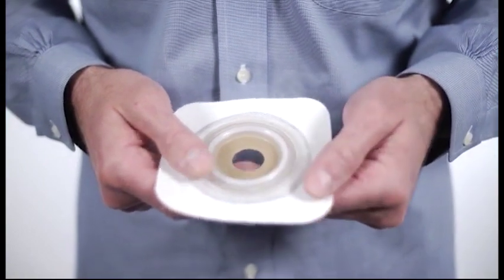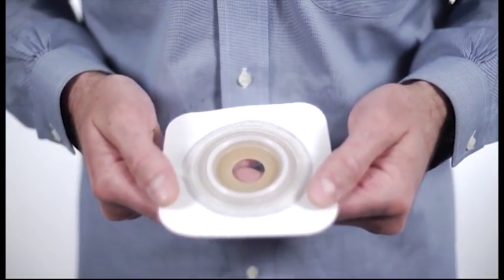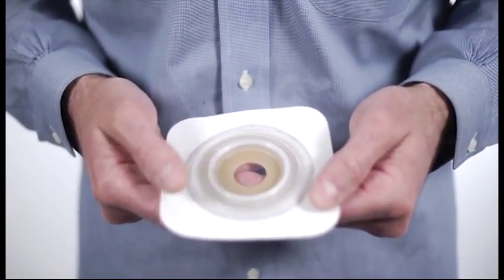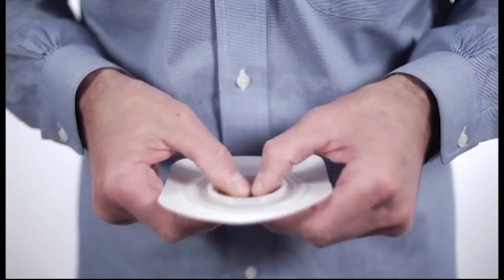When using a Convatec moldable technology wafer, you simply mold the stoma opening to custom fit the size and shape of your stoma.